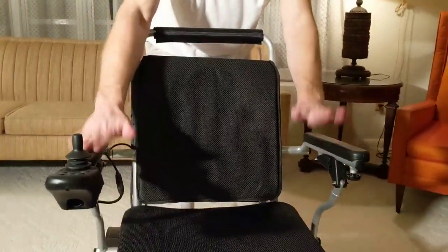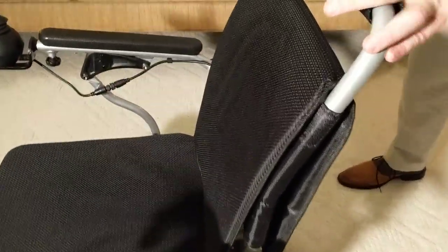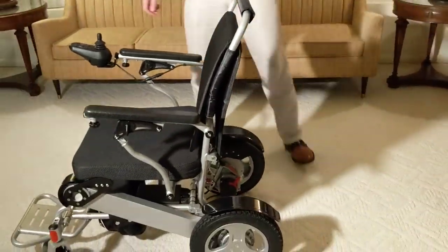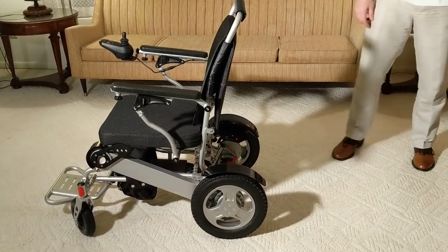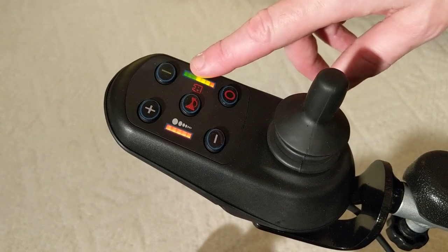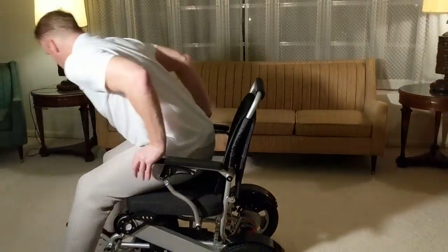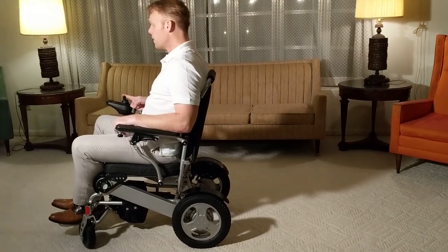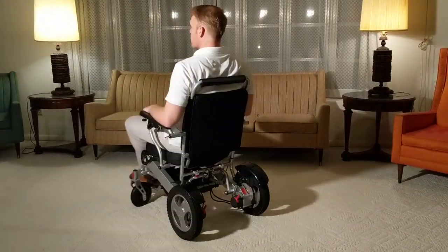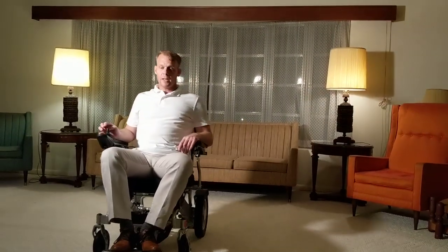It's a very powerful, very wide chair, rated up to 400 pounds. It has the Dura-Shock absorption system for traveling. Powering the joystick on and looking at the controller — when the red disappears, you can see the battery light, there's a horn, and a very easy speed adjuster. This chair has excellent turning radius as well. Sitting with one finger, you can turn on a dime — it's a perfect chair for both inside and outside, very responsive going forward or in any direction.